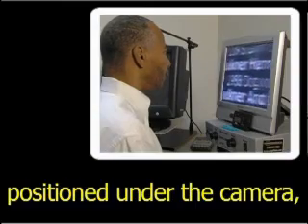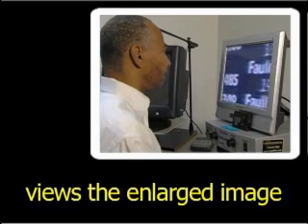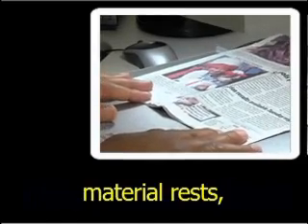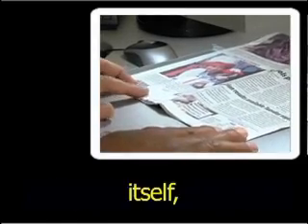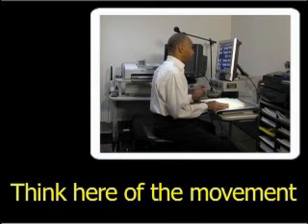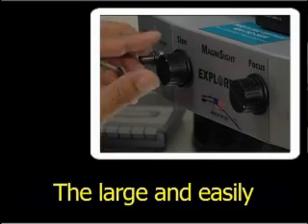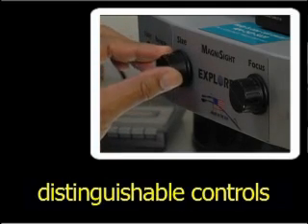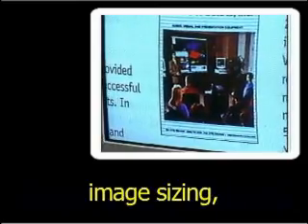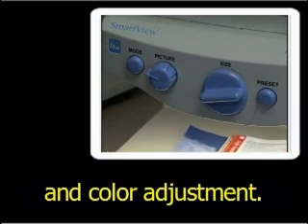With the reading material positioned under the camera, the user views the enlarged image on the monitor and moves the platform on which the reading material rests, rather than the magazine itself, when reading across and panning downward. Think of the movement as that of X and Y on a horizontal graph axis. The large and easily distinguishable controls allow for automatic or manual focus, image sizing, brightness, contrast control, and color adjustment.